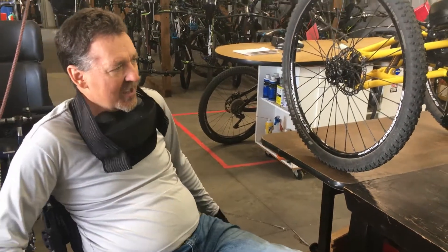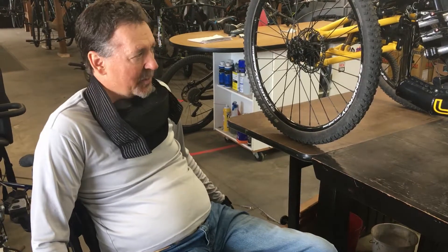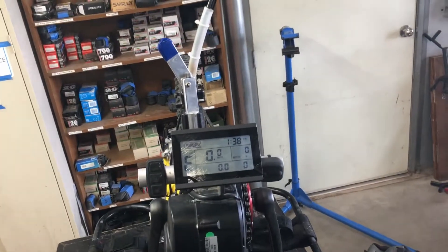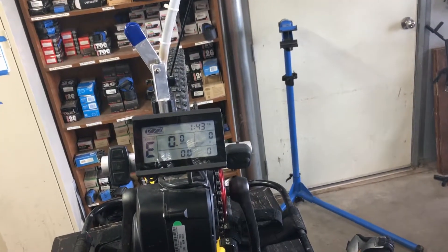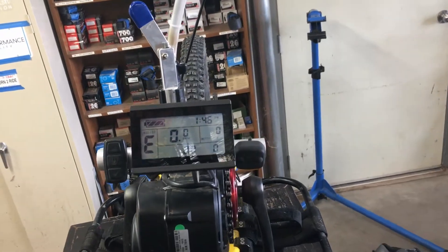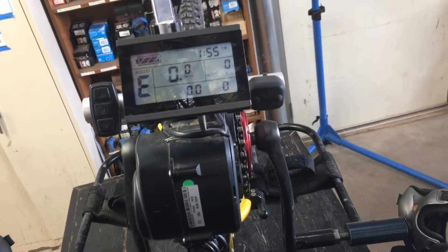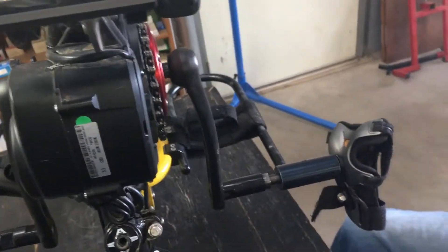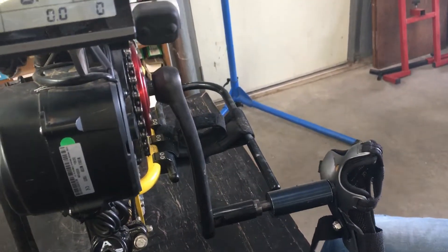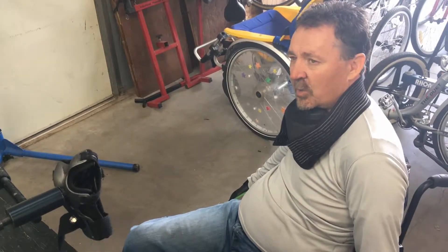30 miles on an off-road hand cycle is a lot of work, but with the power assist, the shifting, and the brake, it makes it all fun and easy. Jared's got the view from where you'd be sitting in the bike, and you can see the display unit — this is the TS-DZ2 display. It has special firmware that's been modified just so that hand cyclers can use it. The power assists are normally set up for strong legs, so volunteers made special software so that weak arms work very well.